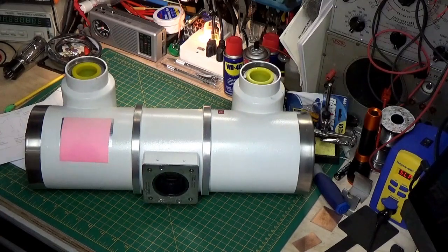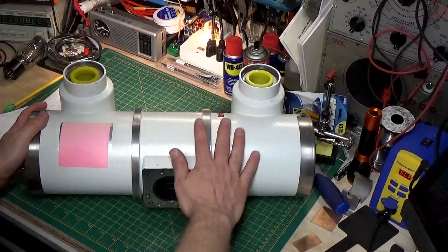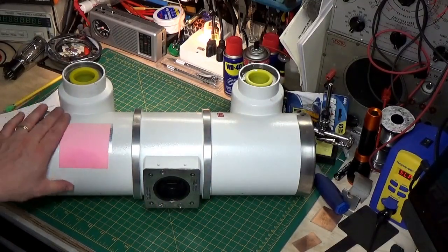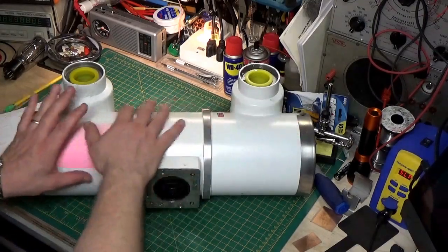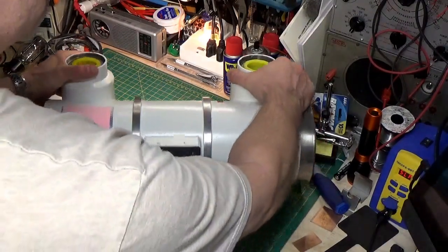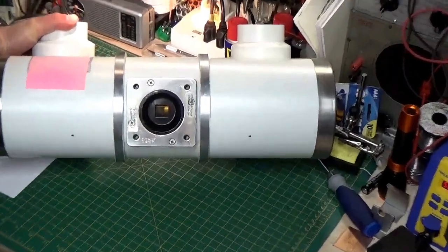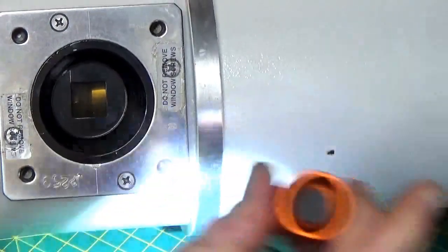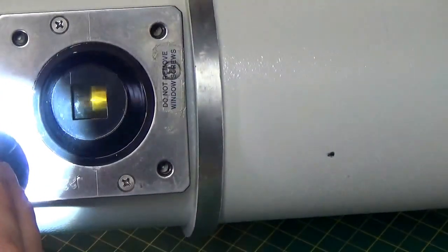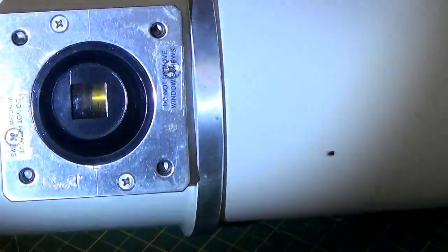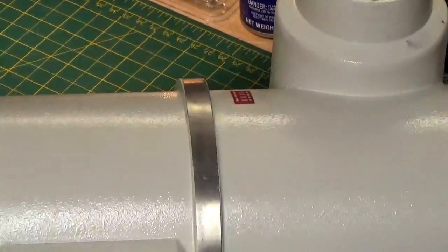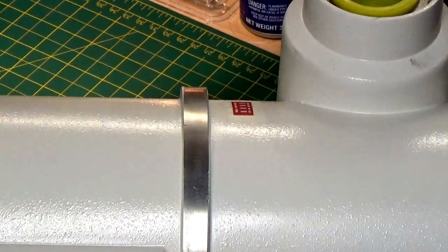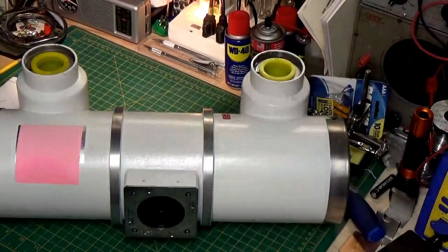So, let's look at some of the parts of this tube. First of all, you'll notice this tube is a big metal cylinder, and it's steel on the outside, or aluminum. And it's lined with lead. So, the lead actually will block the radiation from escaping from the tube. If we look up here, and you look inside here, let's see if we can zoom in. You can actually see, let me see if we can get some light on there. See that little silver, this part right here? That's actually the rotor. And you can't really see it, but right across from that rotor, you would be able to see the filament. Very hard though, because it's kind of down inside the oil, and it's kind of dark inside there.